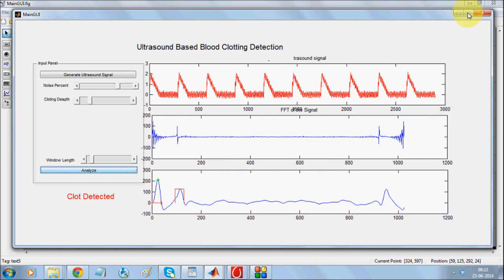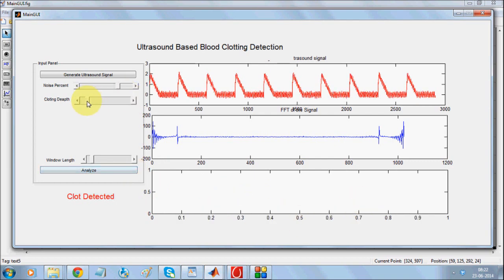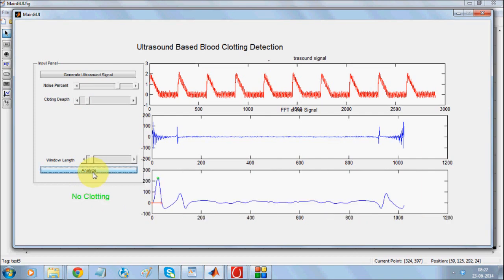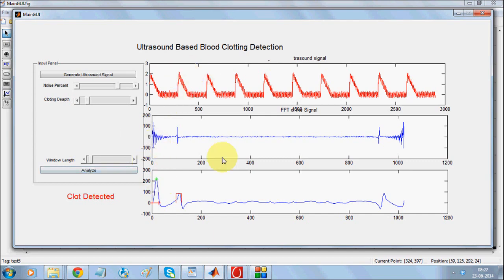I hope you enjoyed the demonstration of blood clotting detection. To recap: blood clotting is nothing but the presence of an extra peak in the ultrasound signal, which could be determined by FFT. However, due to measurement noise, such detection becomes very difficult, and by using the FFT peak alone, you are never able to tell if there is a clotting or not. It requires a windowing technique — we apply a filter to window the FFT signal in order to determine if there is a peak or not. This technique can quite effectively lead to successful detection of the clotting signal, when the clotting depth is sufficient for analysis.